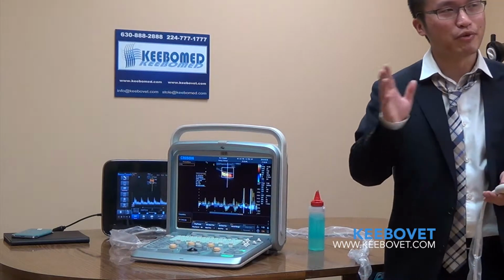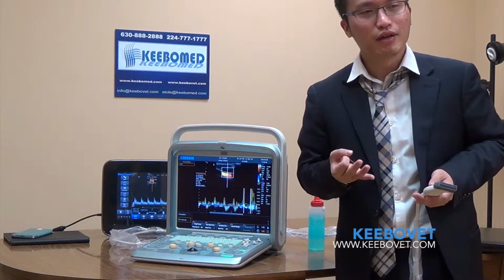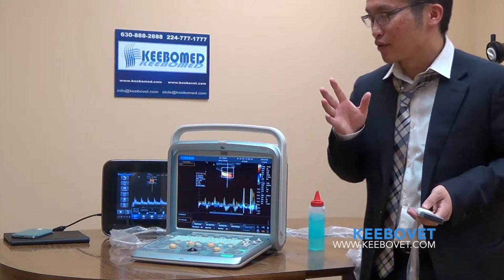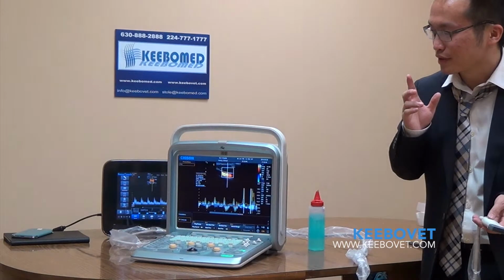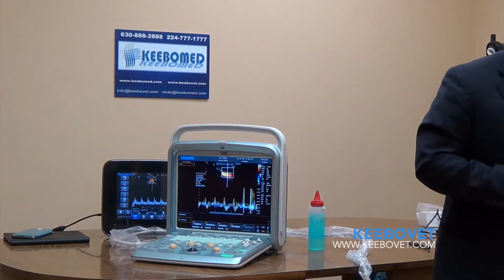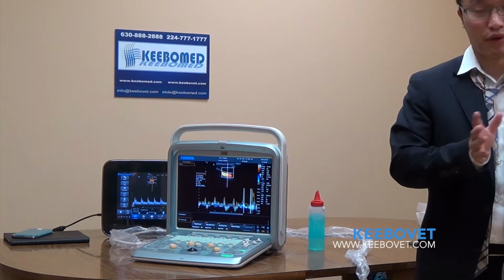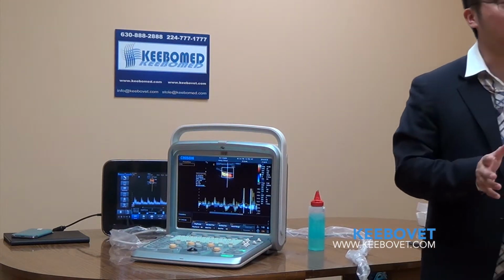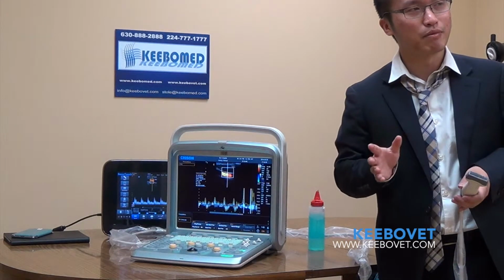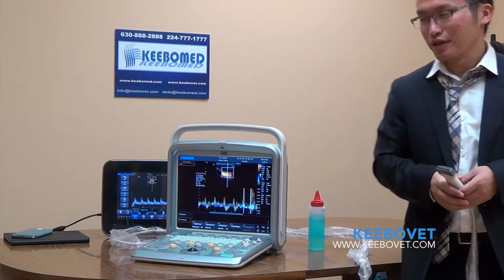As I mentioned, compared with Q5, firstly, we still have a very good workflow, and secondly, because we are based on the Windows platform, it's very user-defined. And also we have some other new features, like we can support continuous wave, so that can allow you to sell this machine in cardiology applications. We have a high frequency linear probe that can allow you to sell for some MSK applications and vascular applications. And thirdly, we have some new functions like BBC mode, like triplex mode, and I forgot one thing. We can support elastography, and we can support ECG. Yeah, so this is our Q9.